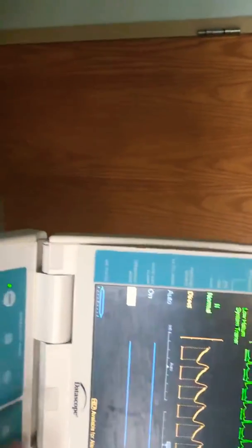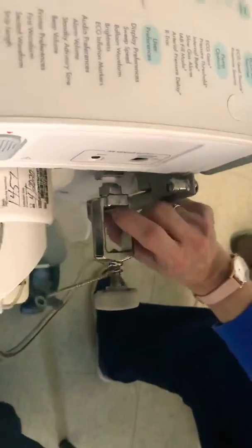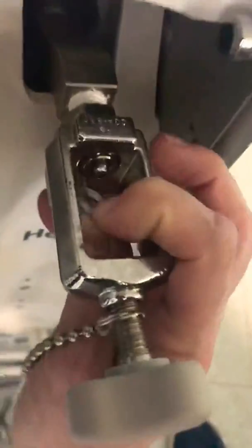Lower the helium system. Remove your tank. Make sure you keep the disc. The disc will come connected with your new tank — make sure you keep that to get your seal.